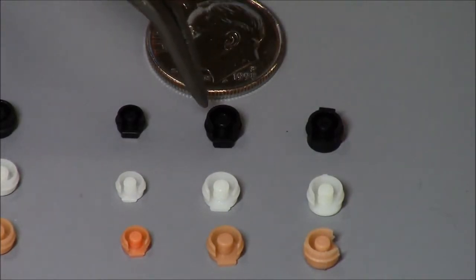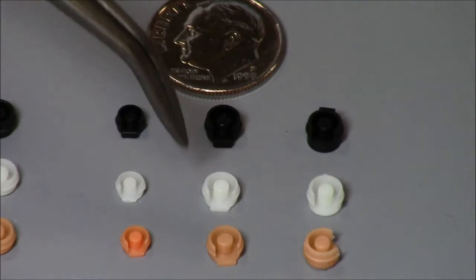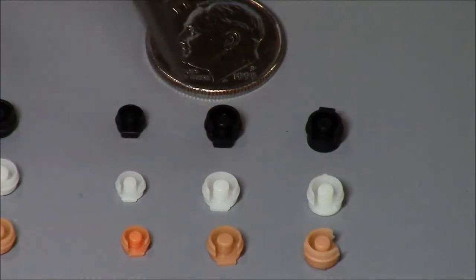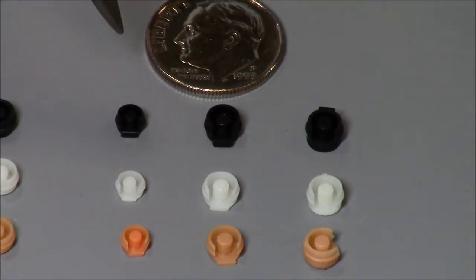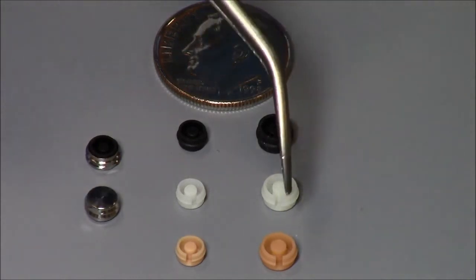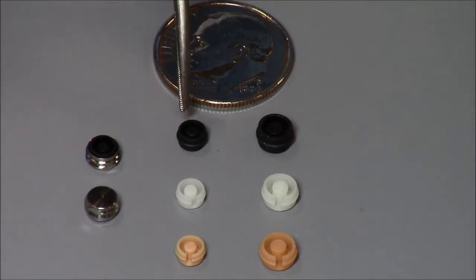These are the RV. So as we say, same diameter, but now we have that little tab at the occlusal, the black, the white, and the orange. And these are the micro. You can notice the significant difference, particularly with our dime in the picture for reference. So the same design as the RV, but 20% smaller. And these are the overdenture males. So these are the standard, black, white, and orange, and these are the micro.